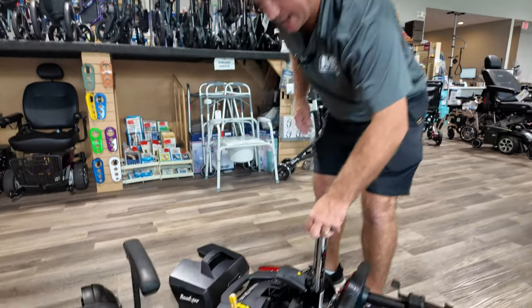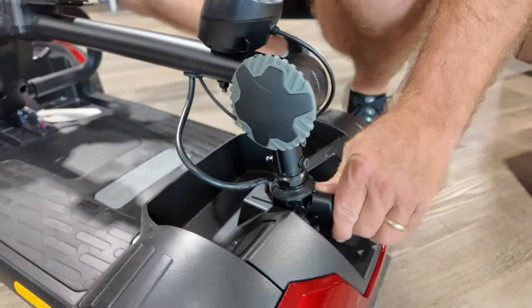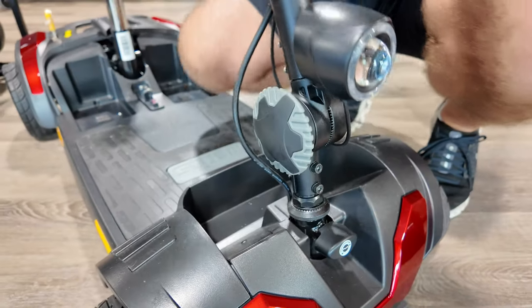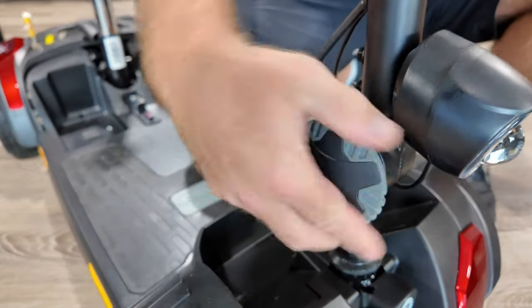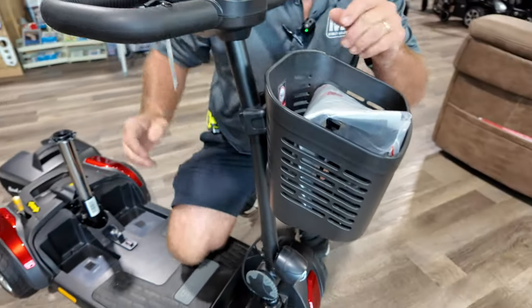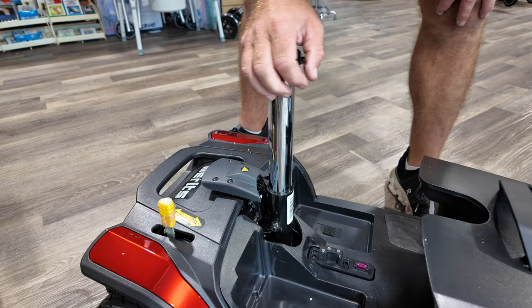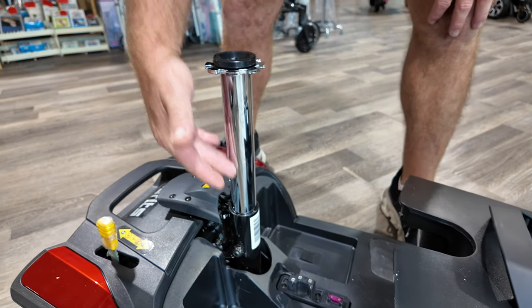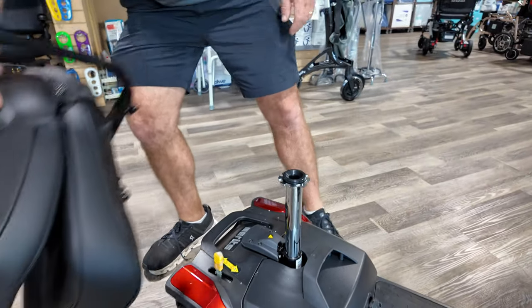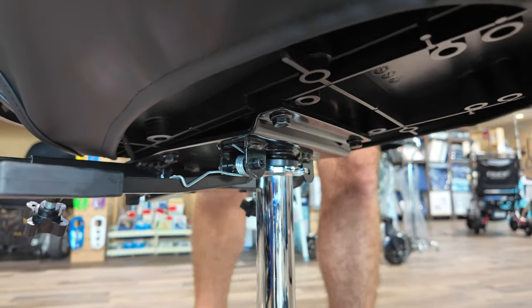Take it — you can walk it back and drop it right on. Come back here, turn this, loosen it, bring this up, tighten it back in. Make sure the teeth are set in there. Drop your basket on, battery pack goes right back down. You can adjust the seat post height, then drop this and put the seat on — just drop it right onto the seat post. You can add a little grease when you get it.